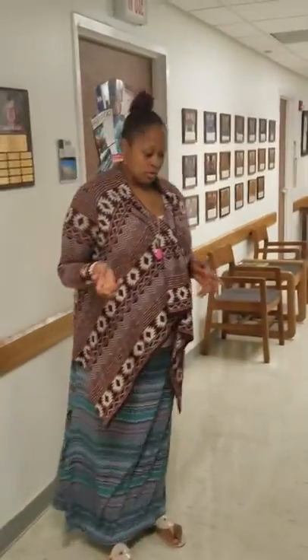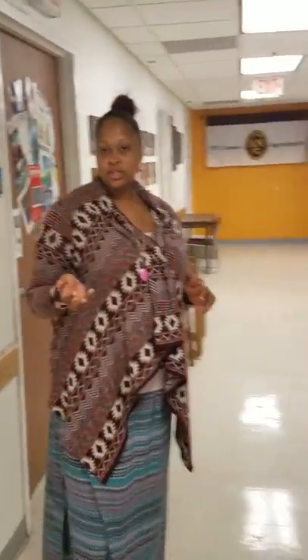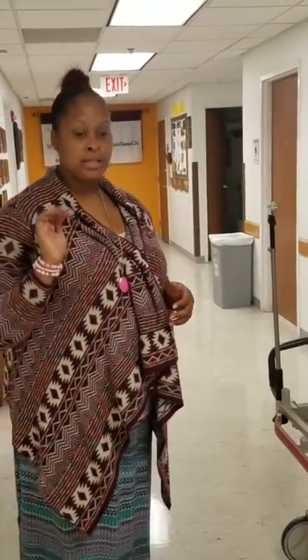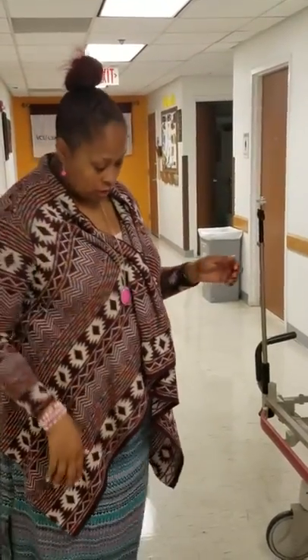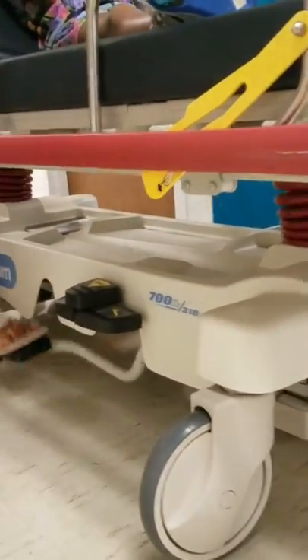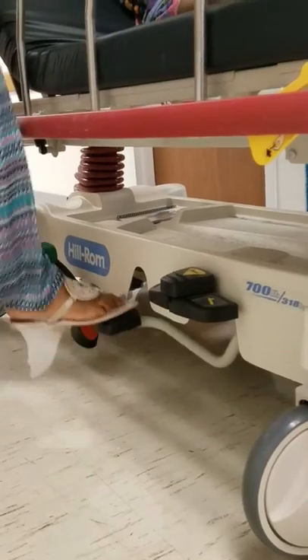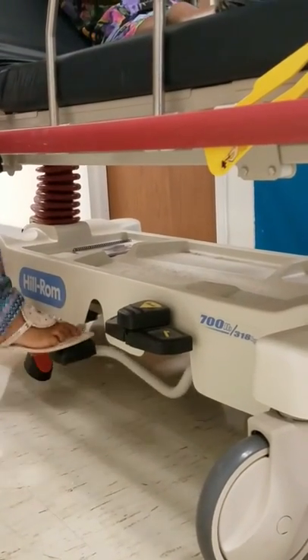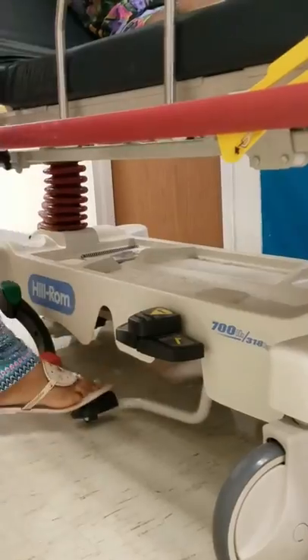You always want to make sure that your stretcher is at the appropriate height so you won't put muscle strain on your body. In order to raise the stretcher, you would use this pedal mechanism, and as I'm pumping it here, the stretcher is going up. You want it at a comfortable height for you to push as you're going through the hospital.